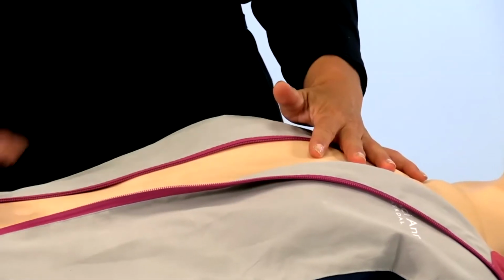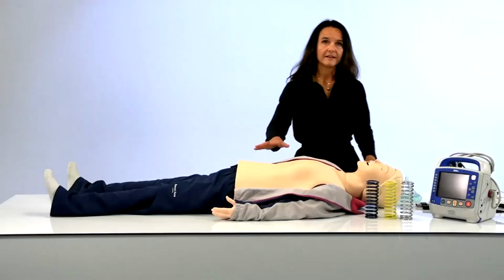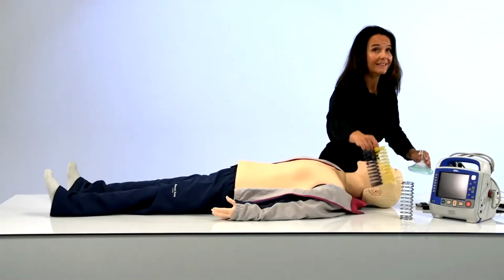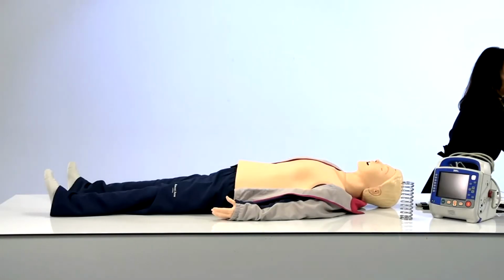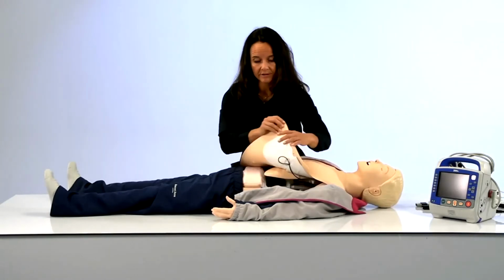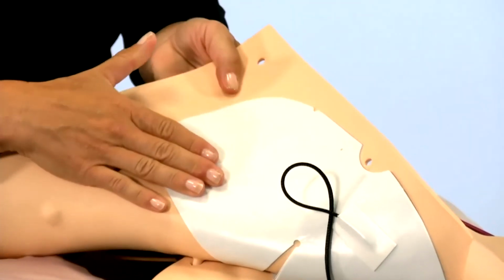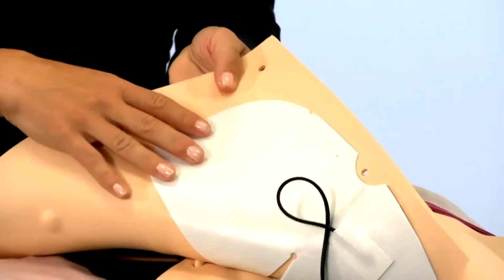During the last years, we have significantly improved the durability of the compression system. We will take a closer look later when we dive under the chest skin. The Resusci HP-CPR in front of me has an AED skin. The AED skin has sensors that enable the mannequin to communicate with real defibrillators using the ShockLink system.